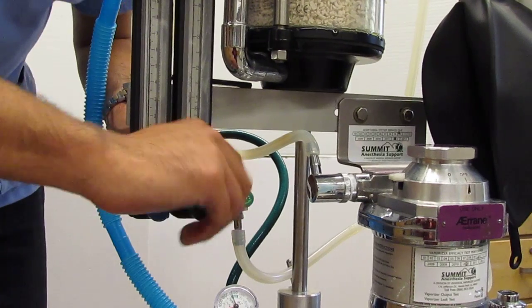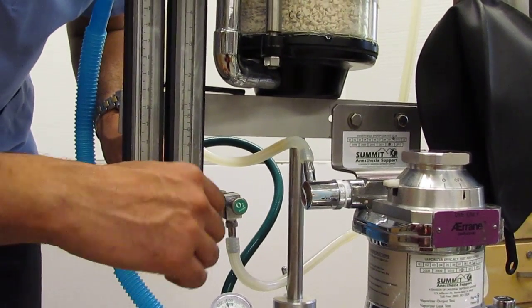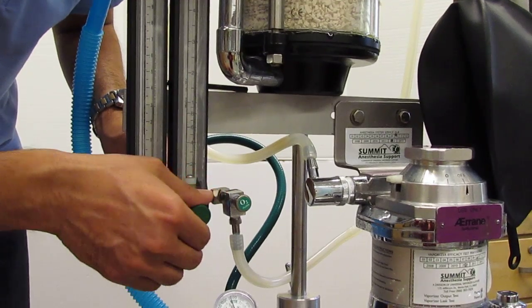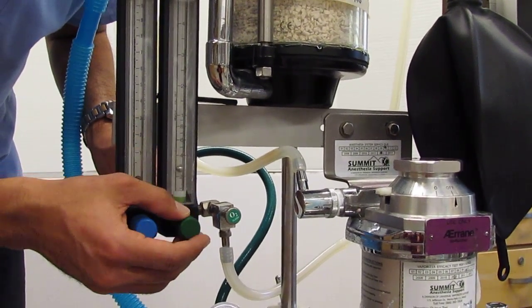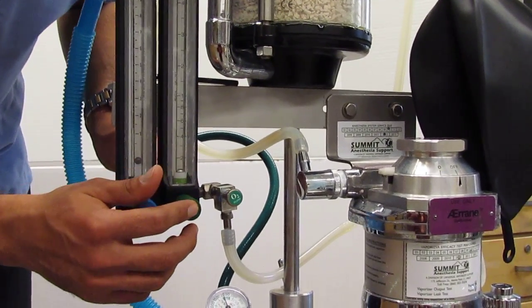I don't have to crank this shut, okay? Like you do some of the other devices like the yoke. You don't have to do that with this because you know that you don't have any flow of oxygen because you can see that on the dial, okay? So be careful. This is a fragile, fragile dial.